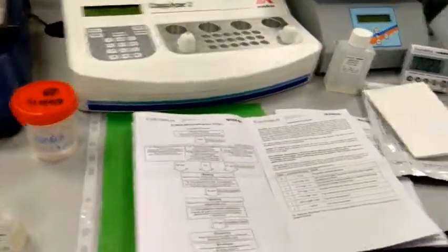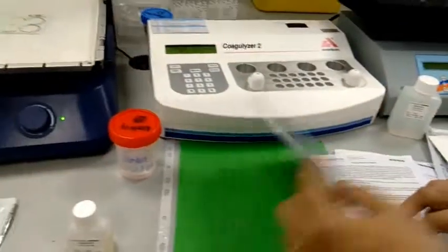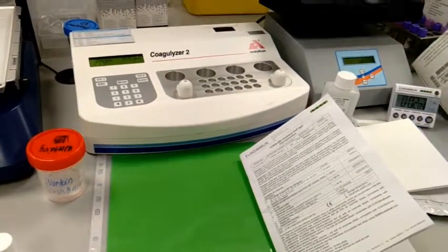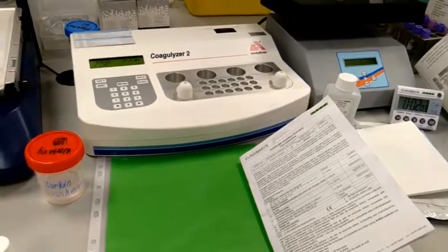Okay, is it clear for you? Sure. So the principle is most likely the ELISA. ELISA for the manual method.